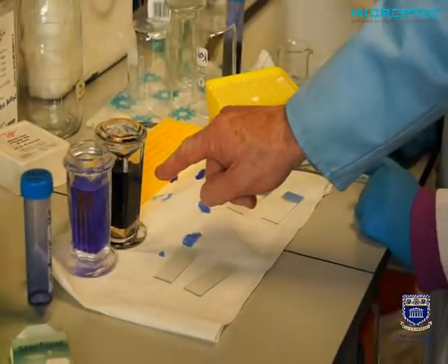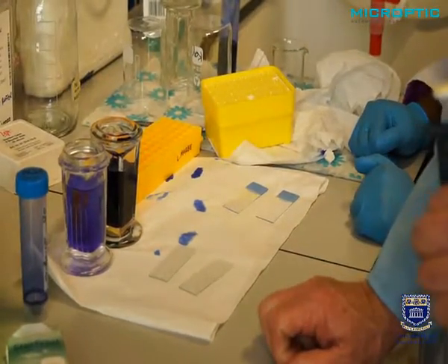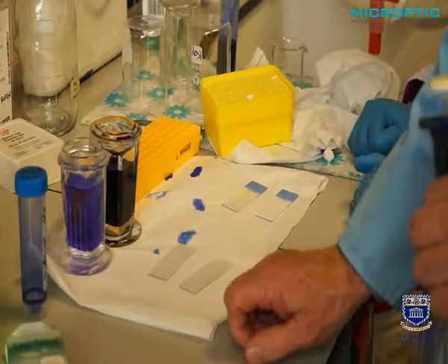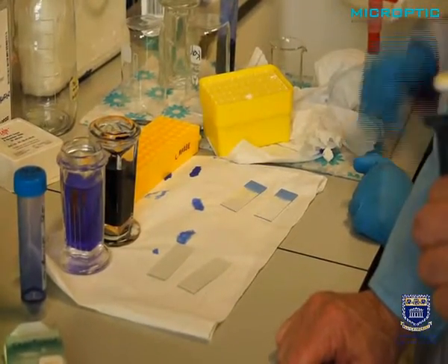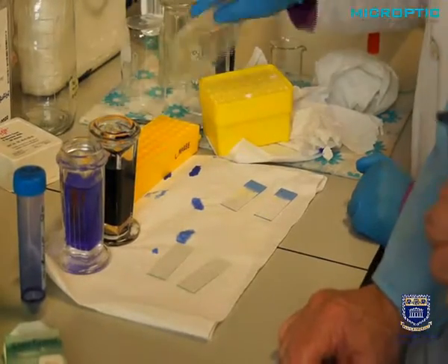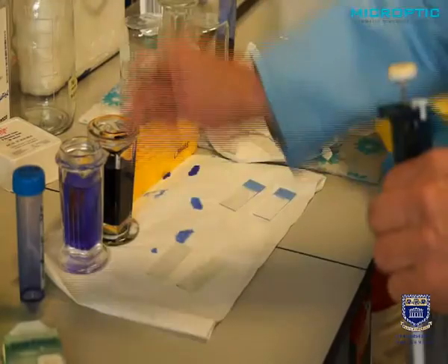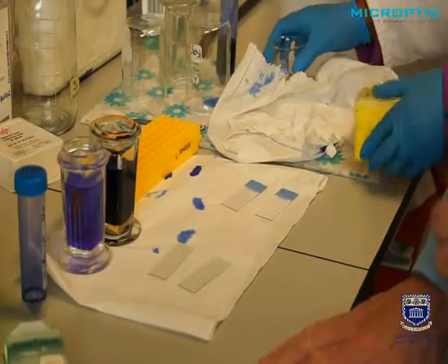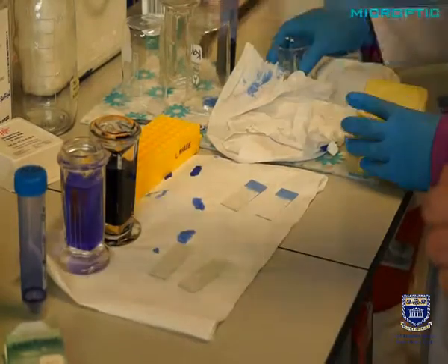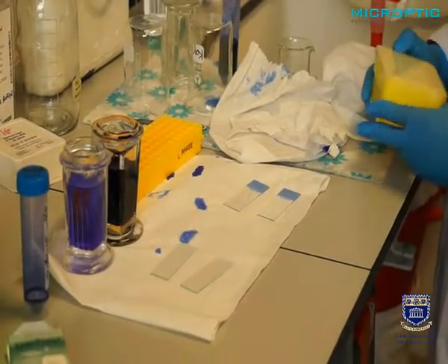It contains both the fixative and the staining component in one solution. And one just needs to insert the slides very slowly in there and leave it for about 45 seconds, and then gently put it in the distilled water again for about another 6 seconds and dry it. And that is all. We will show the procedure just now.